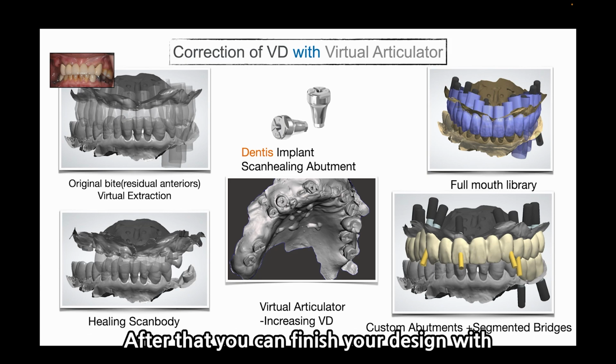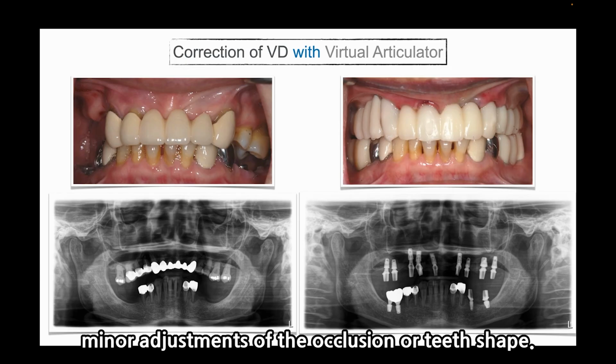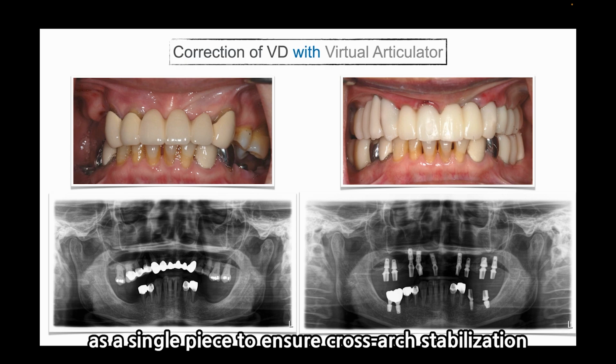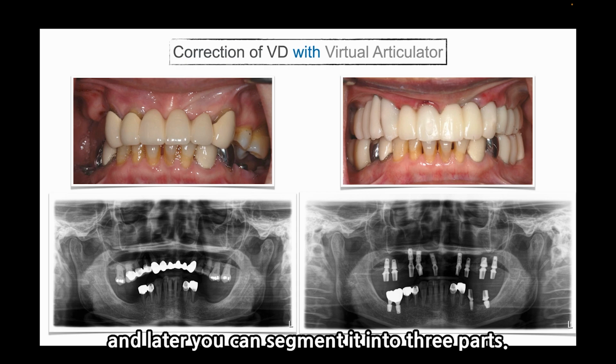After that, you can finish your design with minor adjustment of occlusion or teeth shape. The temporary prosthetics were connected as a single piece to ensure cross-arch stabilization before complete osseointegration. Later, you can segment it into 3 pieces.